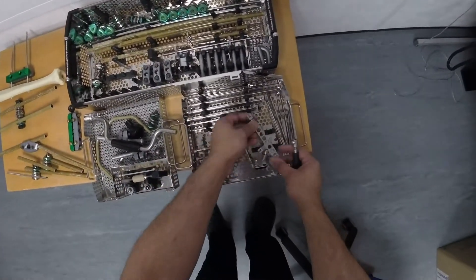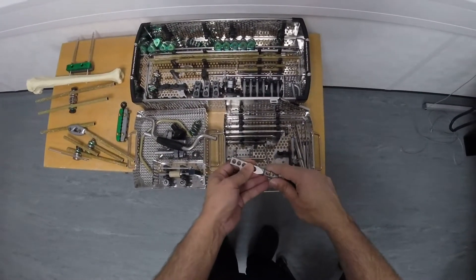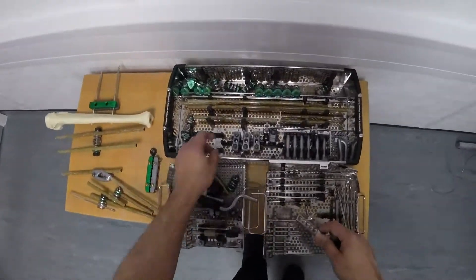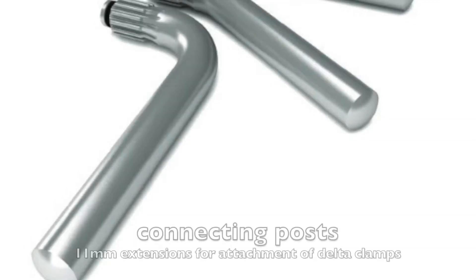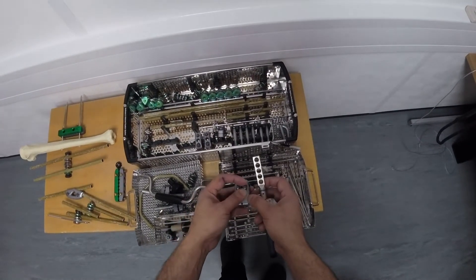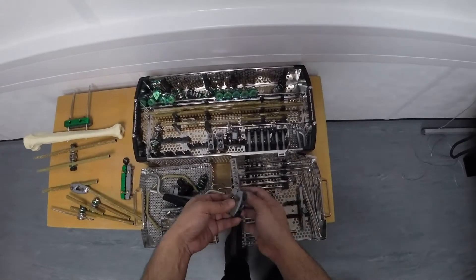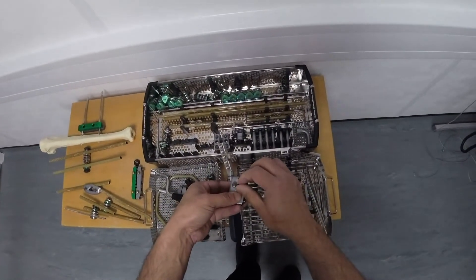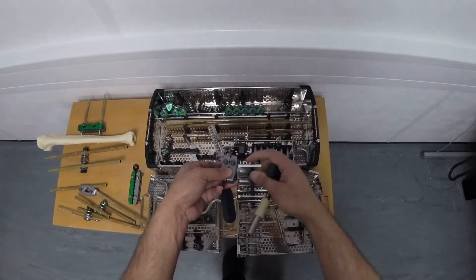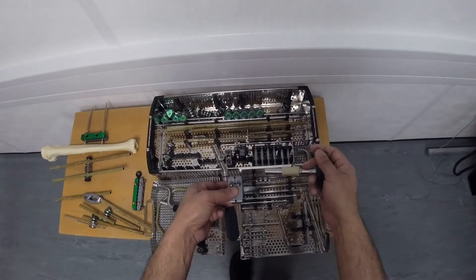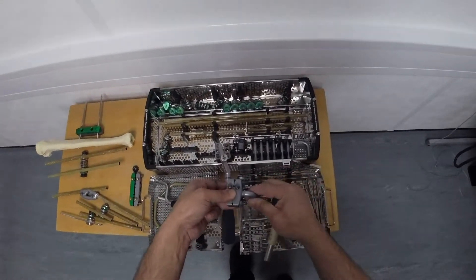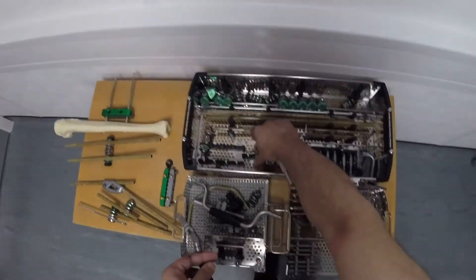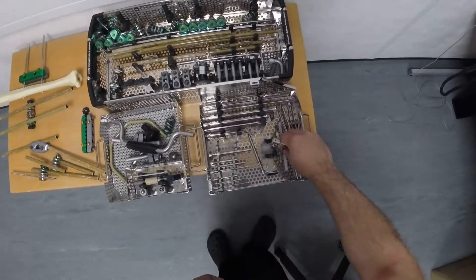This drill guide is for the 10 hole block. But there's also a five hole block. And the five hole block marries up with the five holes on the five pin hole block there. So these bolts at the top are for holding the external bars. I can take one of these and fit it into here. And by tightening the bolts on the top, that will stop the external bar from coming out. And if I want to squeeze the pins, I can tighten up the ones on the side. And this will squeeze it together from side to side. So let's undo that. Put it back.